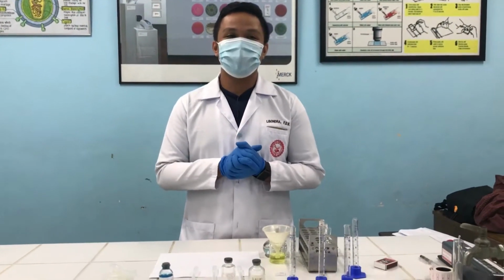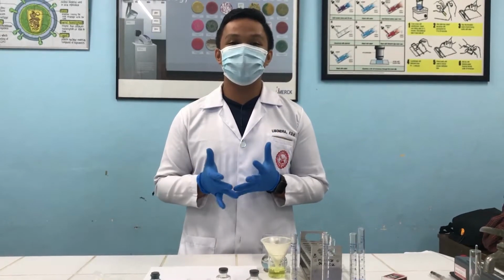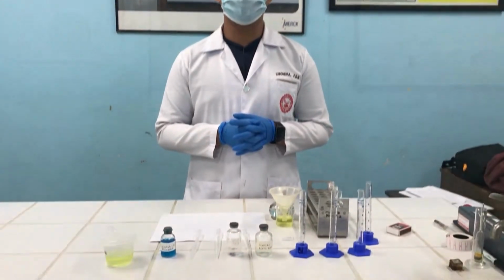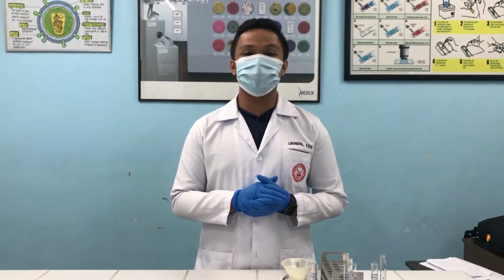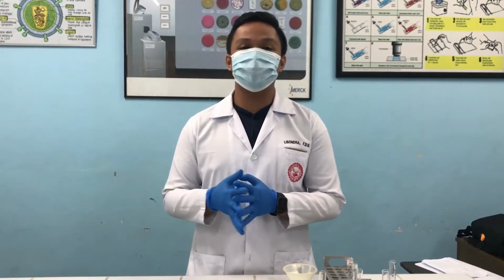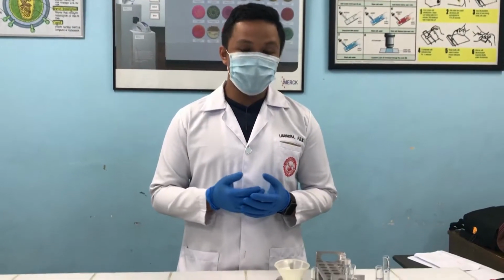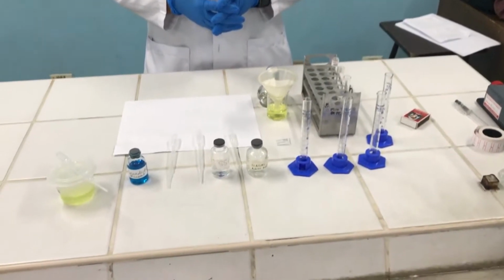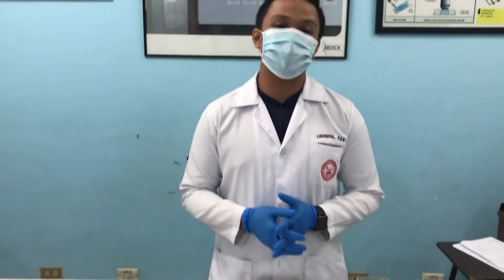Everyone, this is Sir Dwayne, and this time we will be presenting to you the classical chemical analysis of urine. Based on our actual setup, we usually use reagent strips, just like in our previous videos. But this time, we will be discussing this since it is very essential when confirming the presence of such chemical substances in urine.